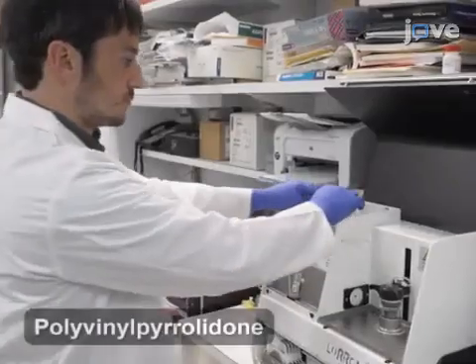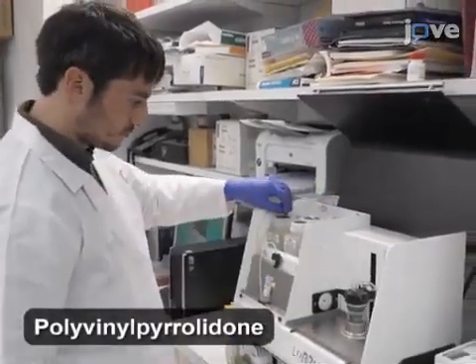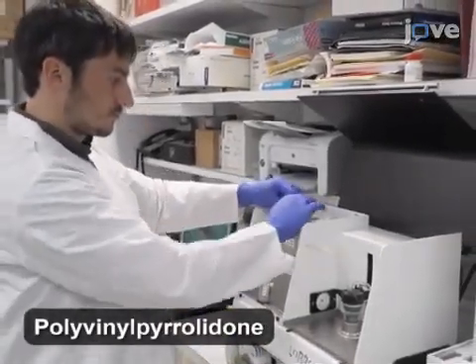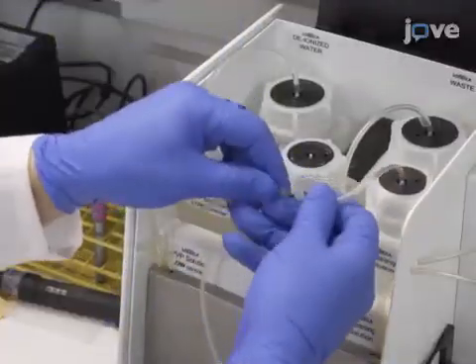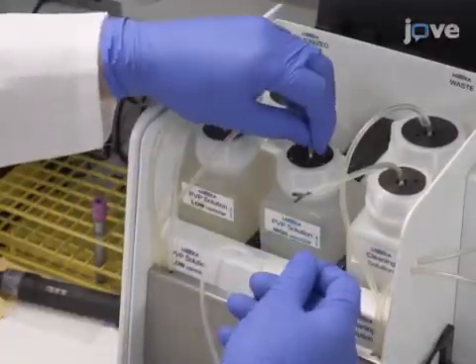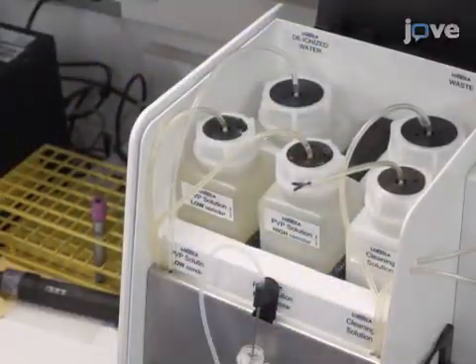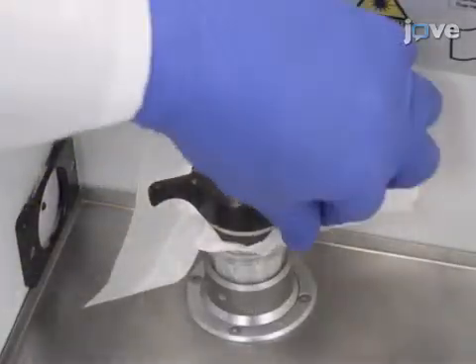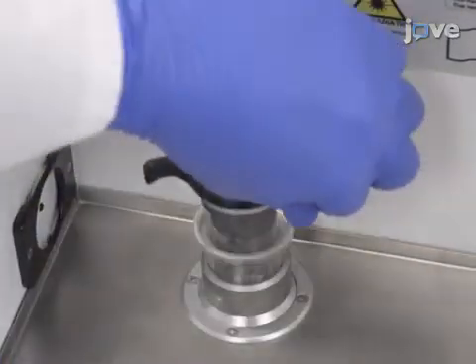Begin by connecting the zero osmolar tube to the low osmolar PVP solution and the 500 osmolar tube to the high osmolar PVP solution. Ensure that the bob is lowered completely into the cup.